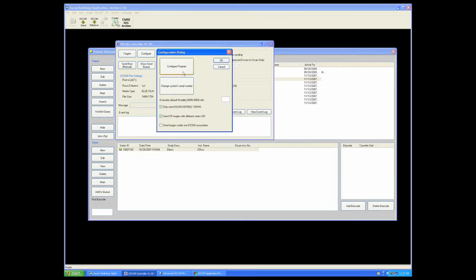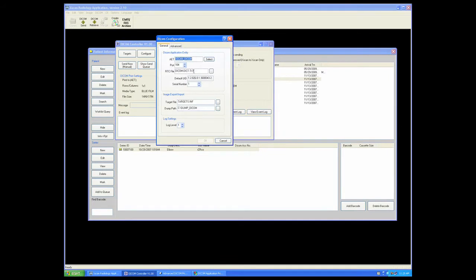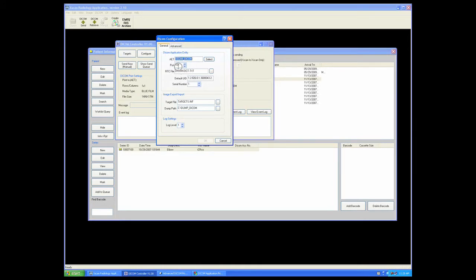The Configure Program button will bring you to the application's entity title, or AET, of this specific unit, as well as the port through which this unit is communicating.